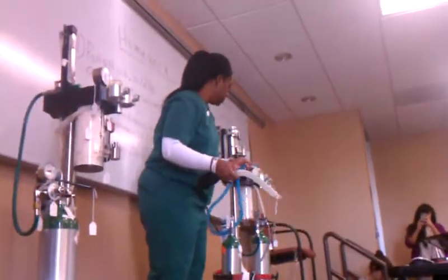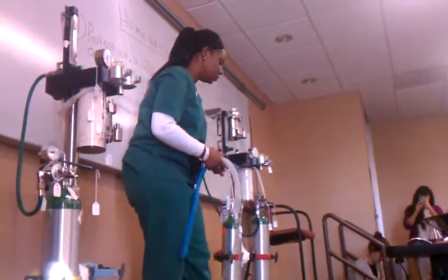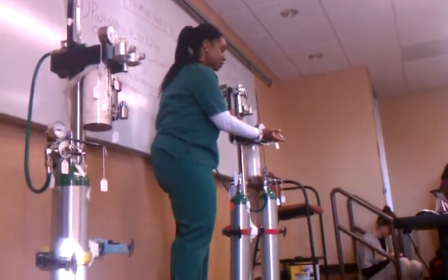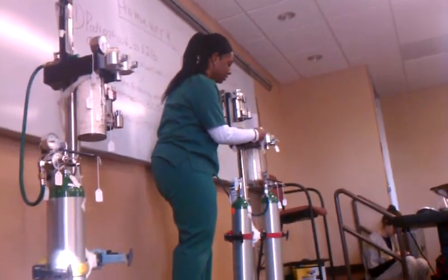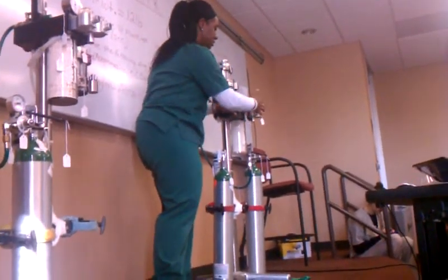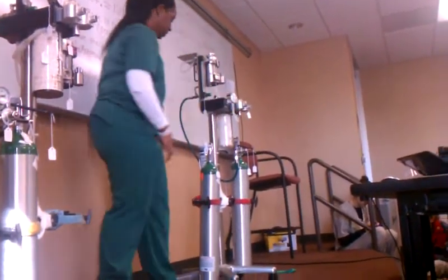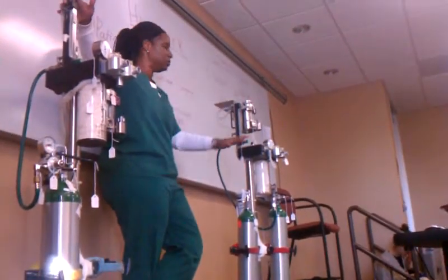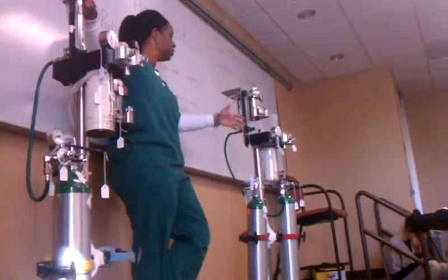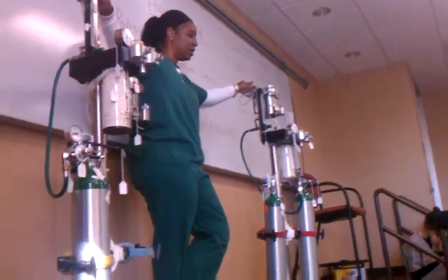So that's the setup for the two systems. If this is ever unhooked, make sure that you hook it up — it always has to be hooked up. The machines will be set up for you. All you have to do is pick the right hoses, make sure your connections are secure, make sure you know the parts of the machine, and make sure everything is properly checked before use.